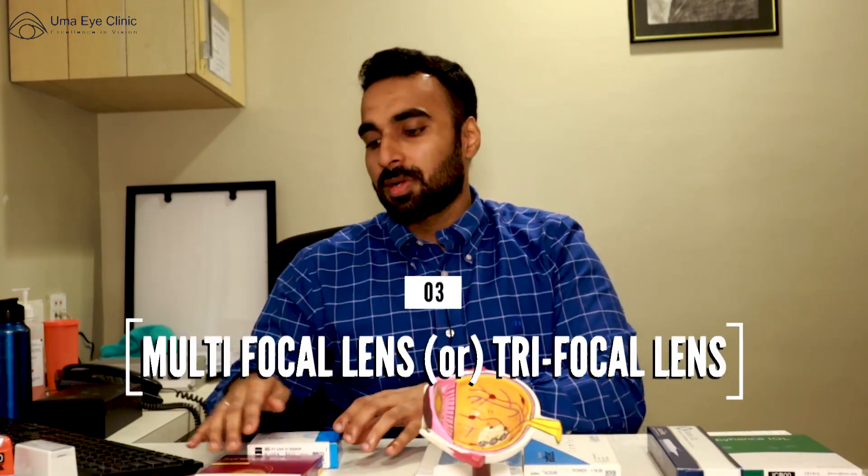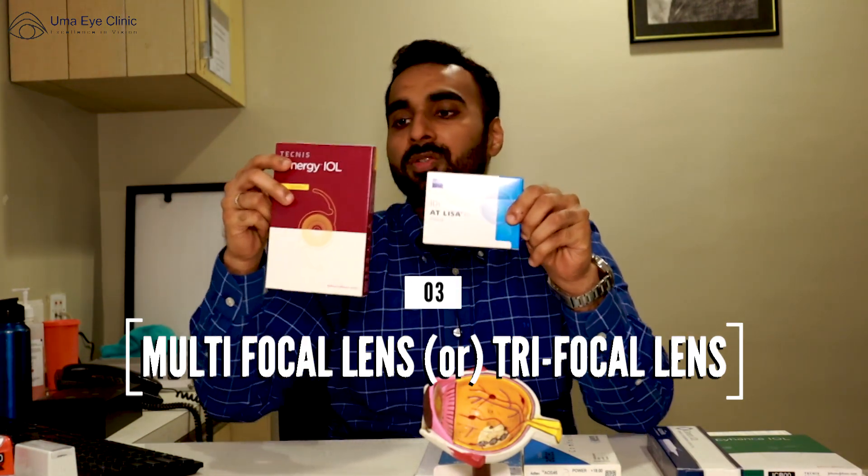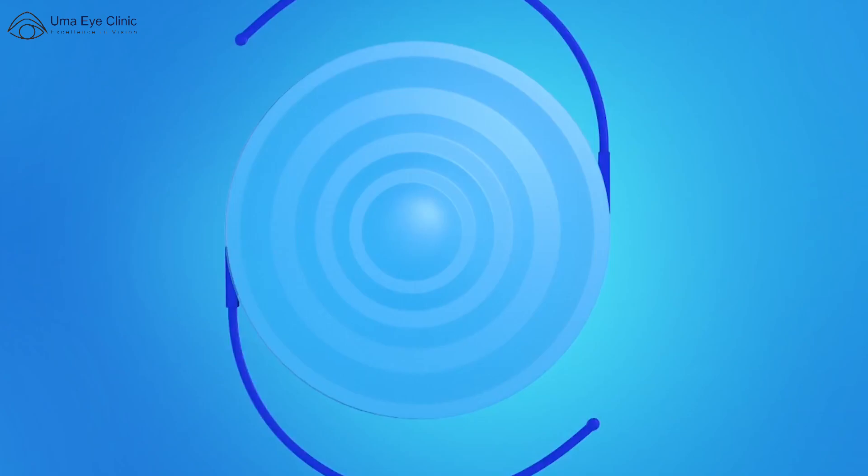Third, we move on to the multifocal or trifocal option. This lens will cover all of the patient's distances. If the patient opts to have this lens implanted, the distance vision, intermediate vision, and near vision will all be taken care of by this lens. You might be thinking — is this the best lens on the market? Is this a lens suitable for everyone? Well, this lens does have one disadvantage. If we look at the lens more closely, you will see that these lenses have rings on them. These rings are what determine the focal points of the lens, giving the patient total spectacle freedom at the distance, intermediate, and near range as well.